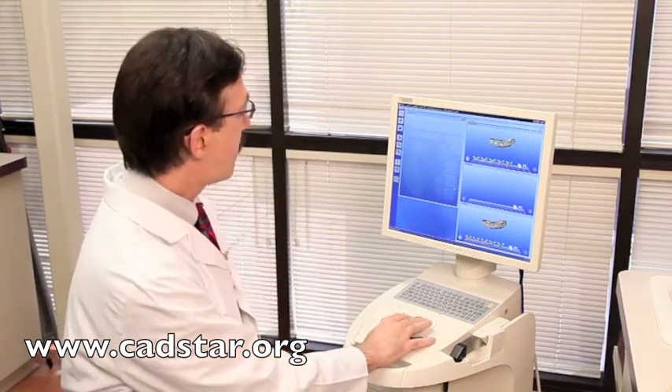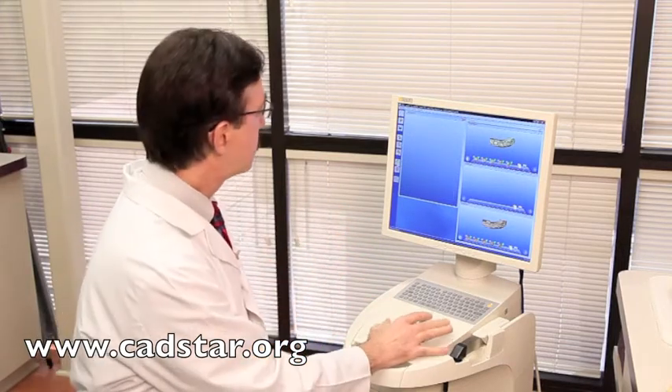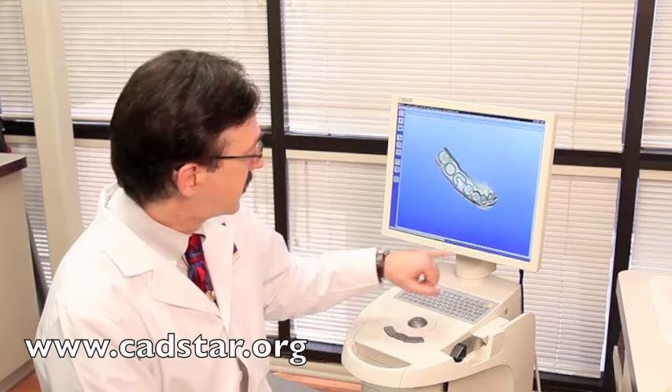Within the design process, once we have this good information, your restoration will be as good as the information we give the computer. We have six basic steps to move through in our design process. Within the CEREC feature, when you're done with a project on a particular screen, you hit the next arrow button — that's a fundamental principle of design. The computer is going to take our two virtual impressions and stitch them together. If you give good information to the computer, you'll get great restorations — just like giving a laboratory an excellent impression yields an excellent result.